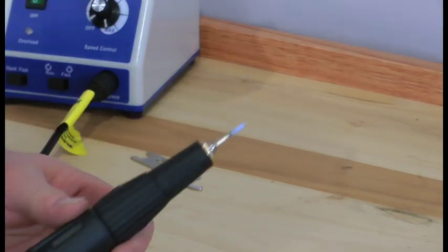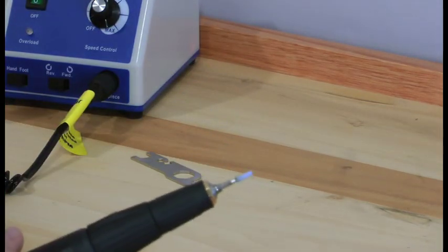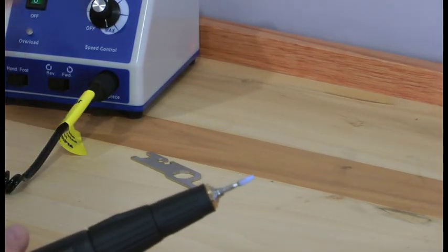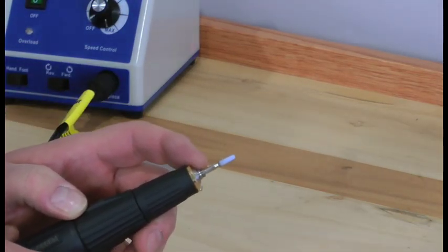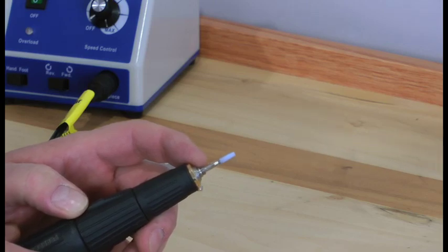Now if your motor overloaded and the overload light came on, that would mean your collet was improperly done. What you just want to do is start all over and make sure that the collet is tightened and that the burr is locked in the handpiece.